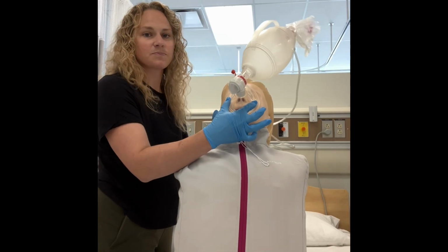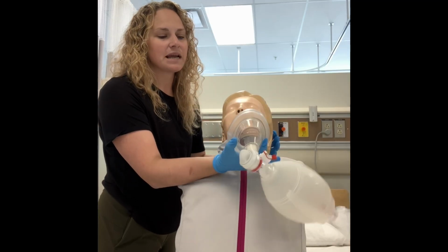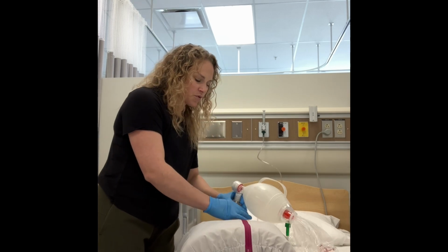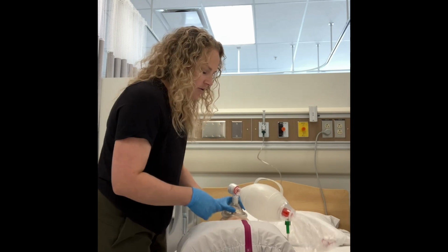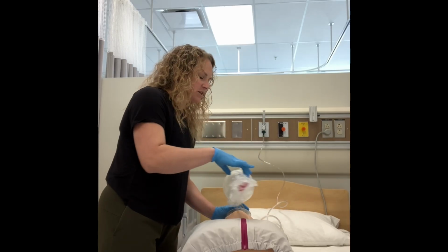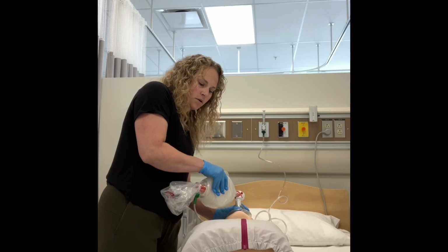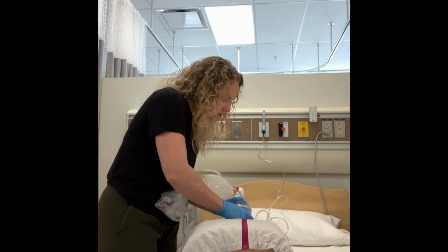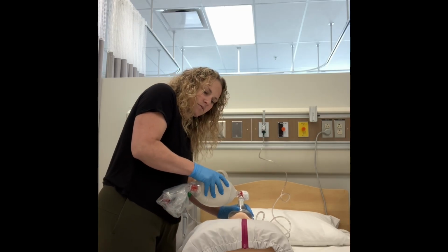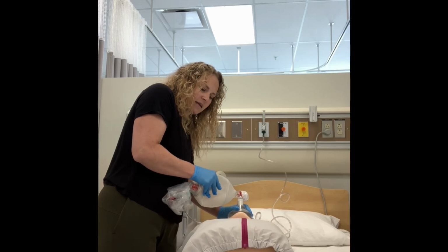This bag valve mask is placed over the face in the same way a pocket mask would be. So with the narrow piece at the top and the thicker piece at the bottom. And then you would create a seal here. Now you still need to maintain that head tilt, okay, in order to make sure the airway goes in. And then you squeeze this bag to provide ventilations. And you can see here that my chest is not rising. Oh, there we go.